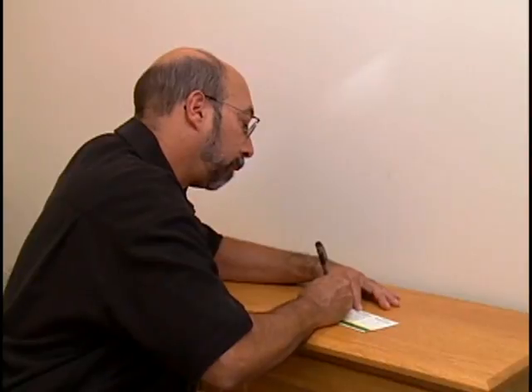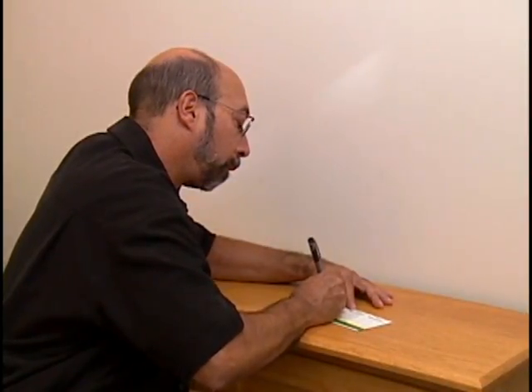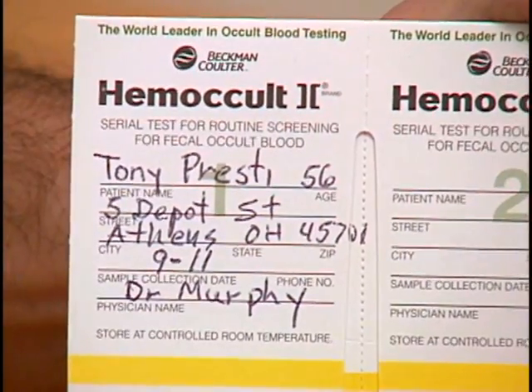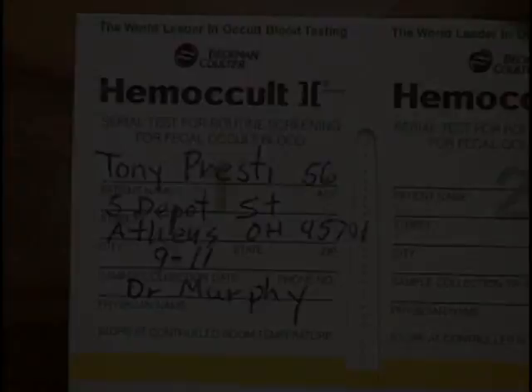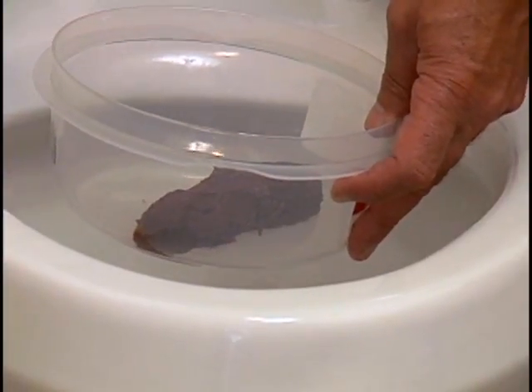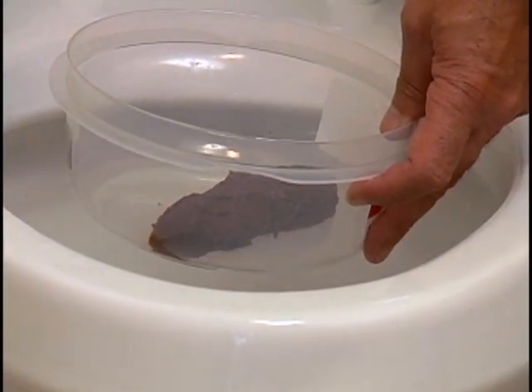First, fill in the collection date on the front flap of the first cardboard slide. If you are using a toilet bowl cleaner, remove it from the toilet tank and flush the toilet twice before proceeding. Use a clean, dry container to collect the stool sample. The sample must be collected in the container before it comes in contact with toilet bowl water. Allow the stool to fall into the collection container.